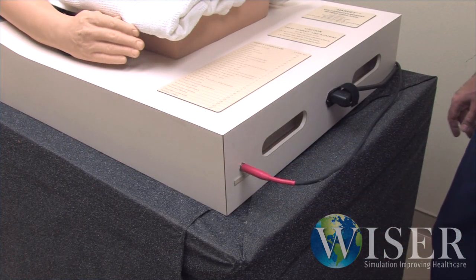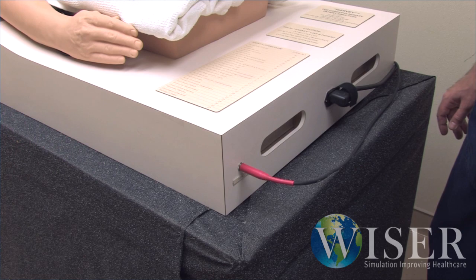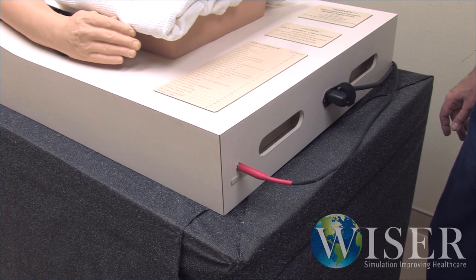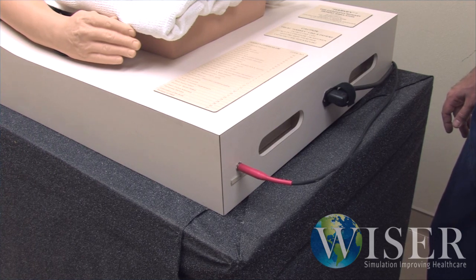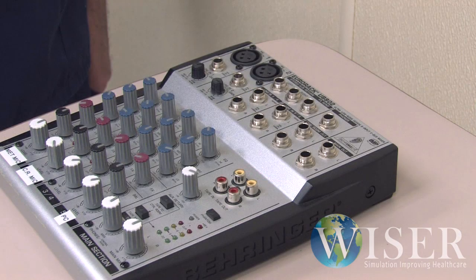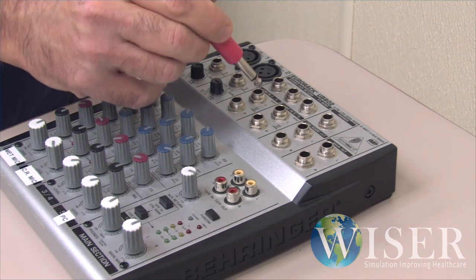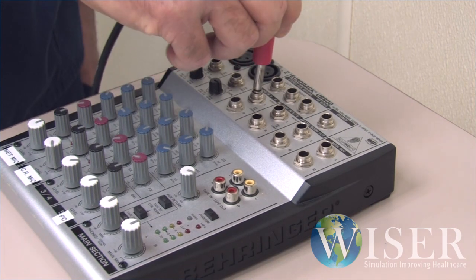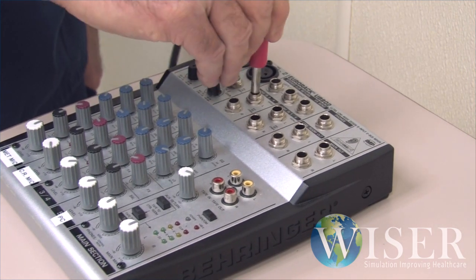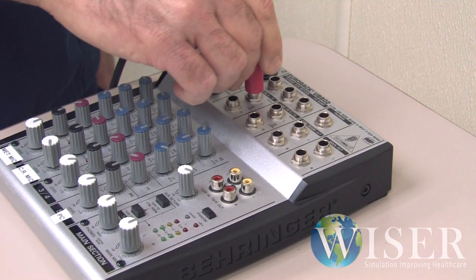Simply obtain a ¼ inch cable and plug it into the sound output outlet on Harvey's box. Locate an available PA system with an available sound input, plug the other end of the ¼ inch cable into this open channel, and be sure to adjust your volume levels.